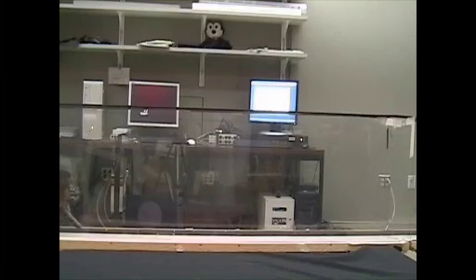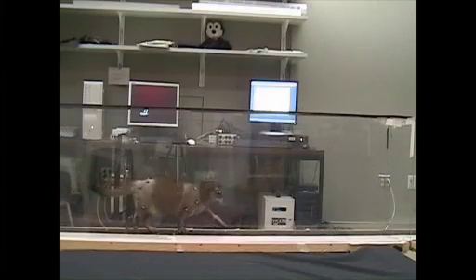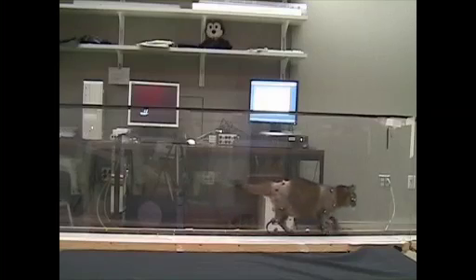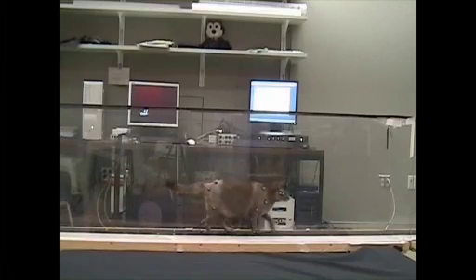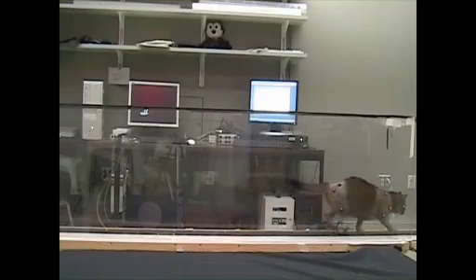This is a cat that lost a limb, a hind limb. You can see a little cute prosthesis that's directly loading the cat's skeleton mechanically. And again, electrically, we can run wires right through the conduit.